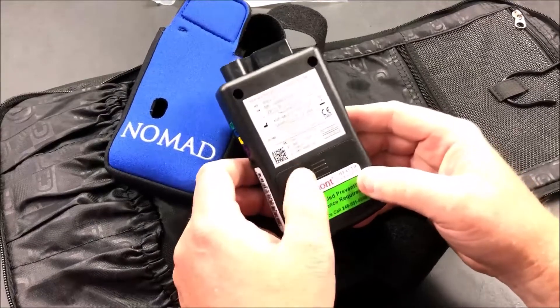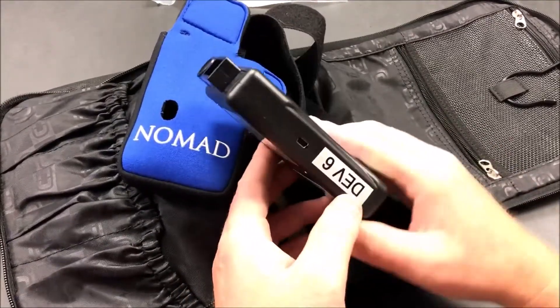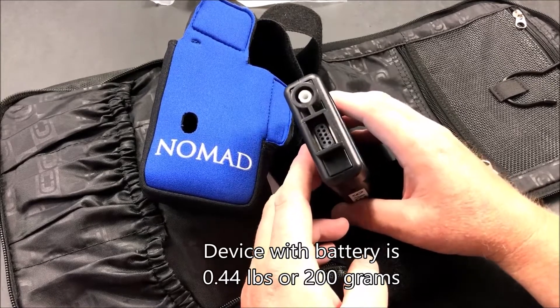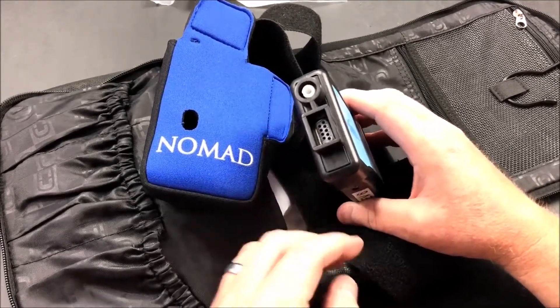The back just has where the battery holder is, and it's pretty lightweight. This is what's actually going to be worn on my body during the sleep study, so I won't have anything to plug into a wall — completely battery operated. There are a couple of connections here that I'll show you with the other components in a moment.